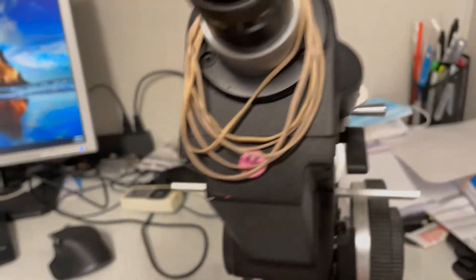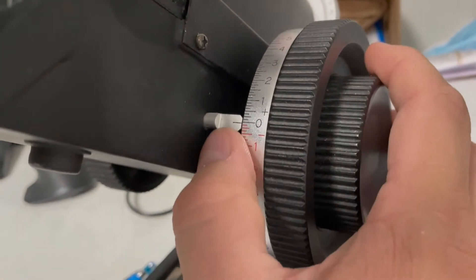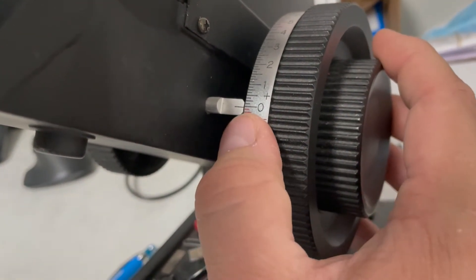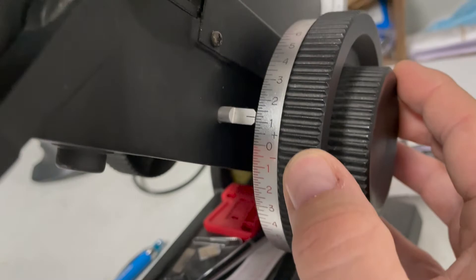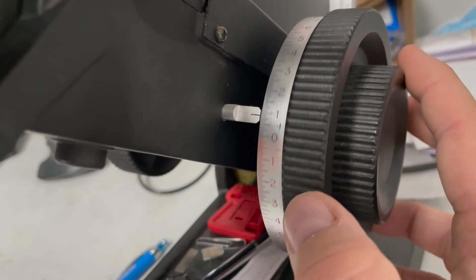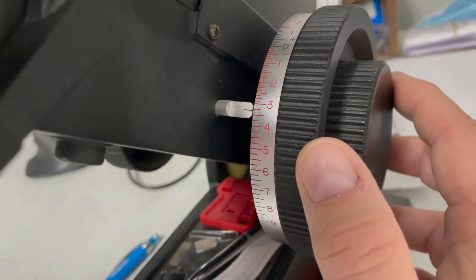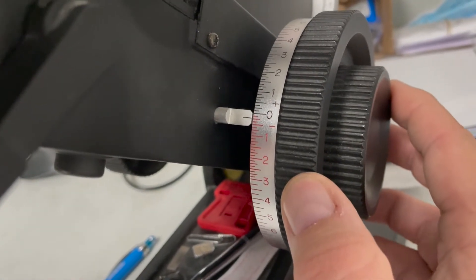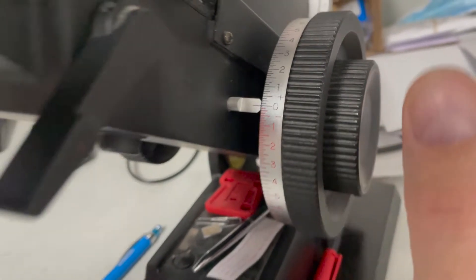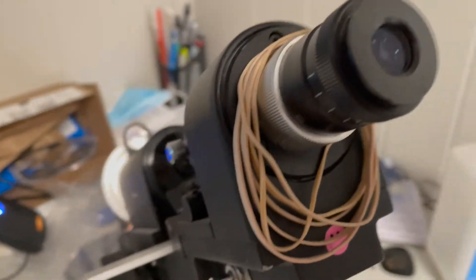All right and down here is your power wheel or your power drum. So this is your zero and going into the black goes to positive, going into the red goes to negative numbers. And I will show you how you check powers and determine them in a video yet to come.